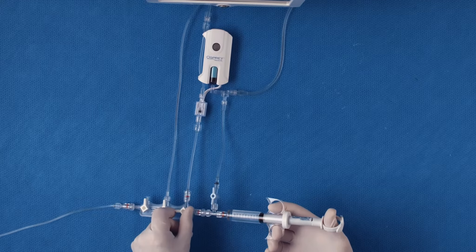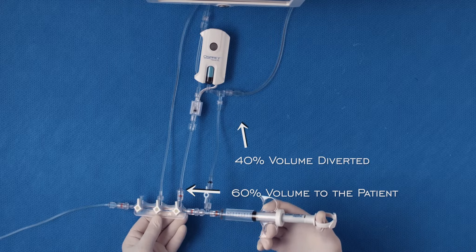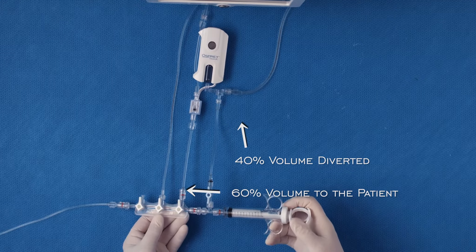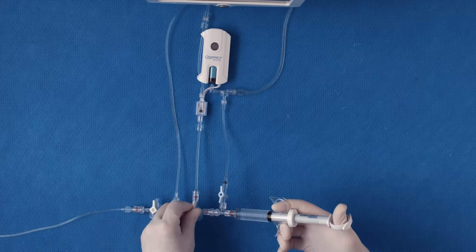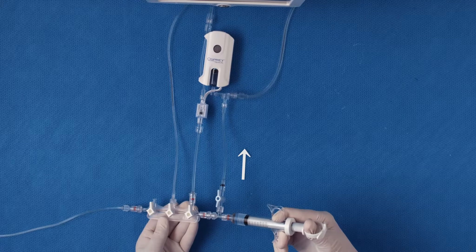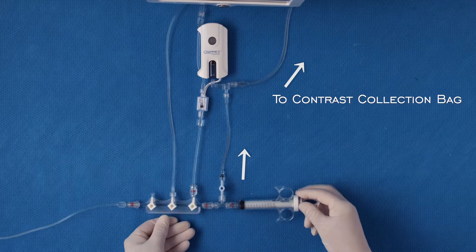The system reduces contrast dye volume by diverting approximately 40% to a reservoir while allowing approximately 60% of the volume to be delivered to the patient. The contrast volume diverted away from the patient is initially collected in the reservoir, then empties into the contrast collection bag for disposal at the end of the case.